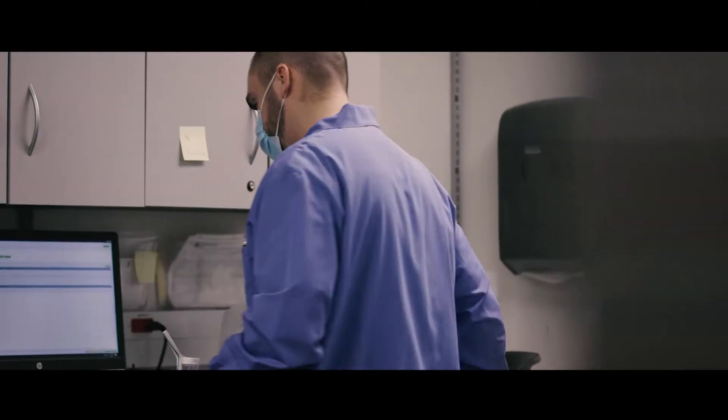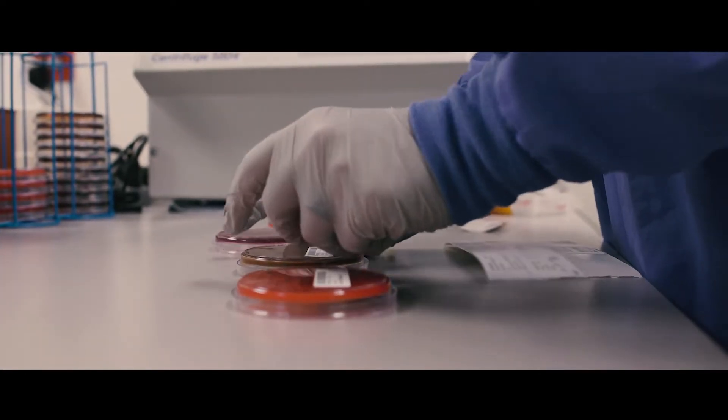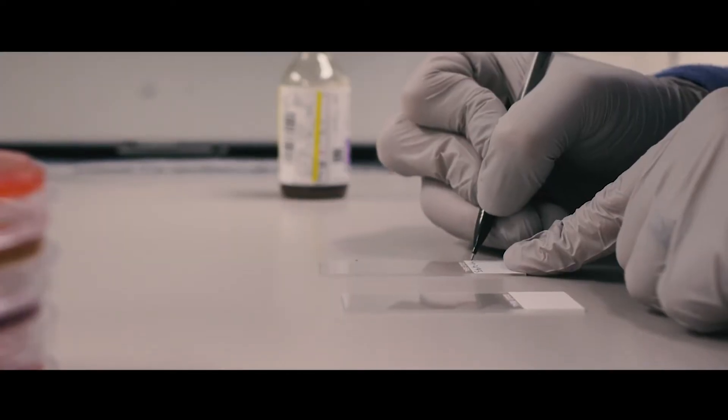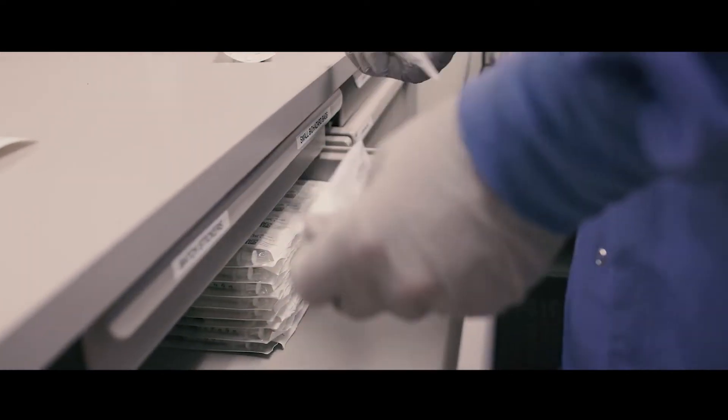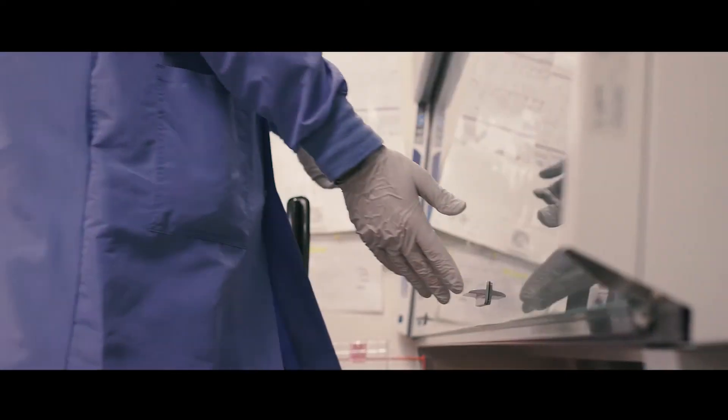A typical day at Unity Point Health is that no one day is the same for us. I usually will be running anything from flu, strep throat, we perform COVID testing, any type of testing that involves an infection in a patient.